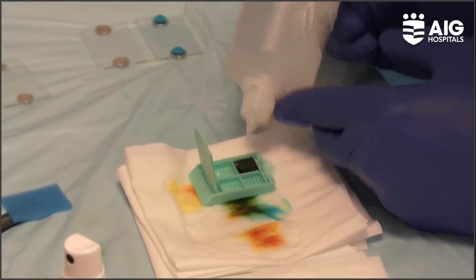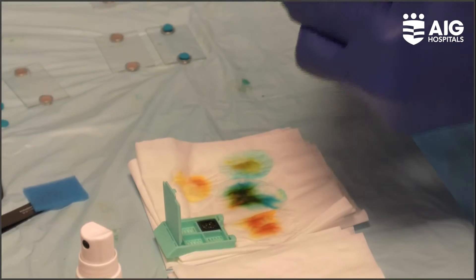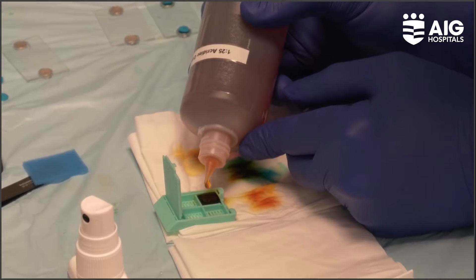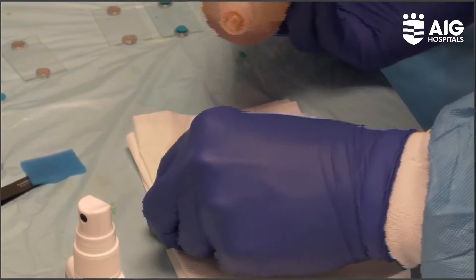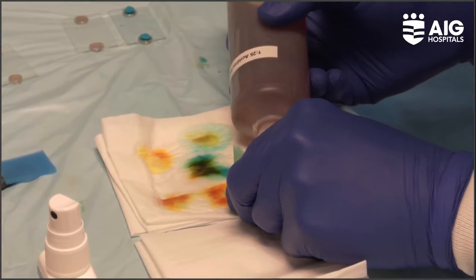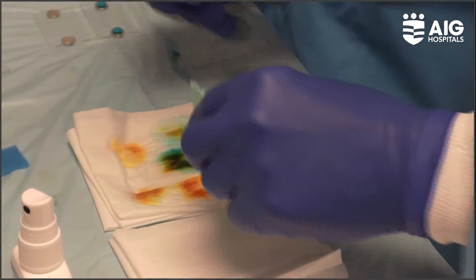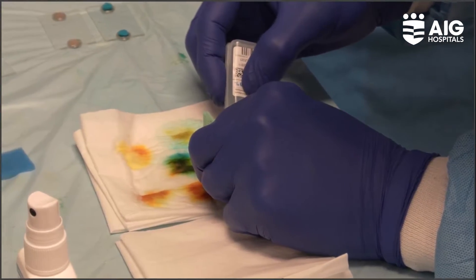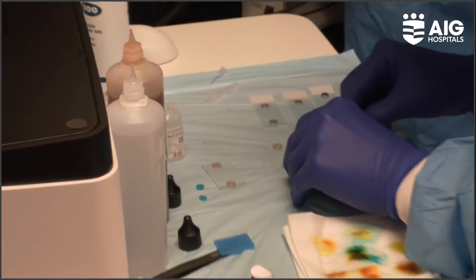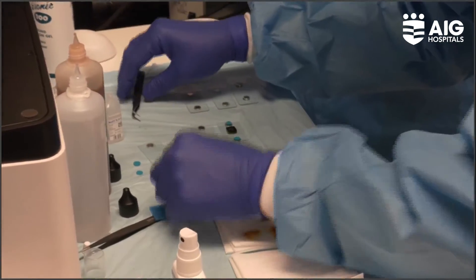It's like a three-dimensional sheet analysis where you go through different layers of the tissue. The advantage is we are able to see the relation of cells with the stroma as well. After applying the dye, you wash with saline, and then the whole thing is put on a glass slide which has magnets on the sides to provide compression for optimal imaging.